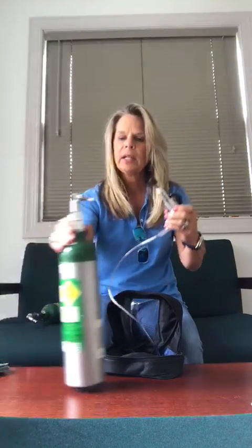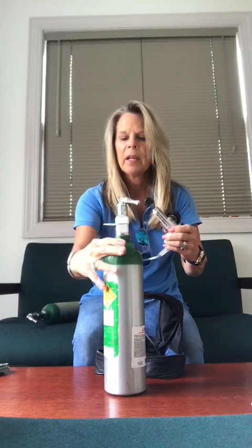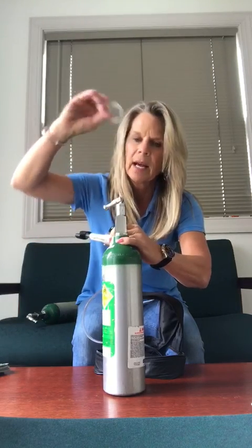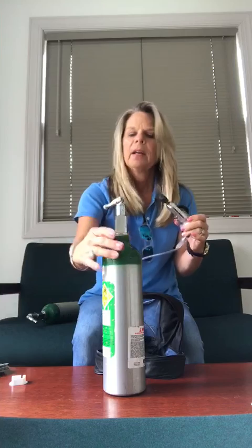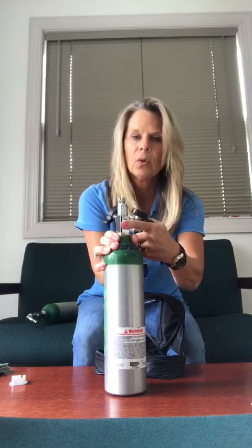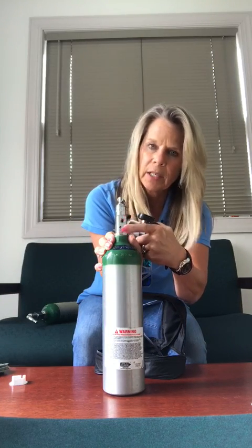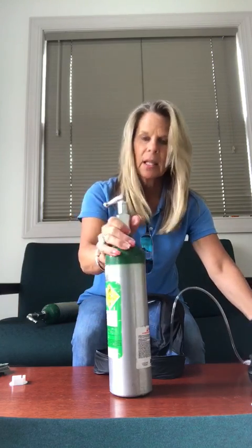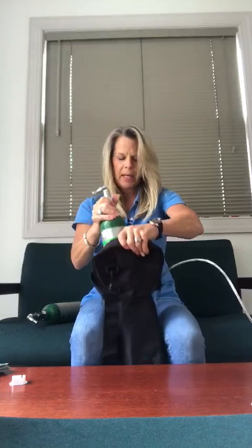I'm going to grab my new tank with the tab on. I'm going to take my finger in the hole and pull the tab off. Then I'm going to take the three holes that are here and point them to my left hand. I'm going to slide this into the bag.